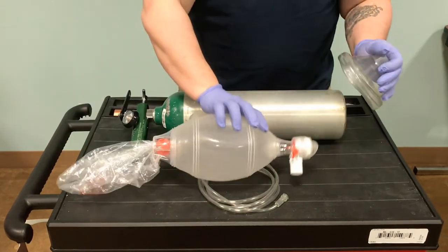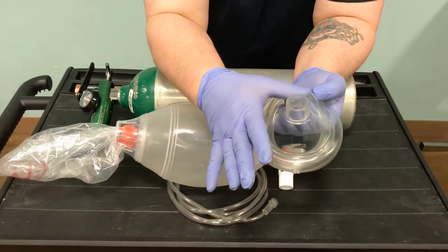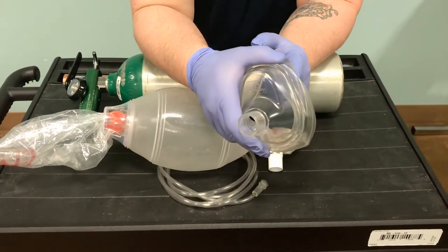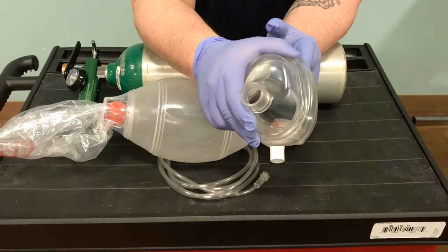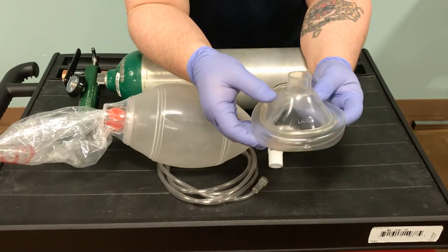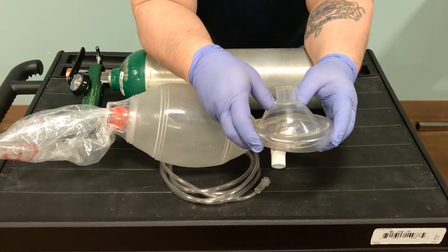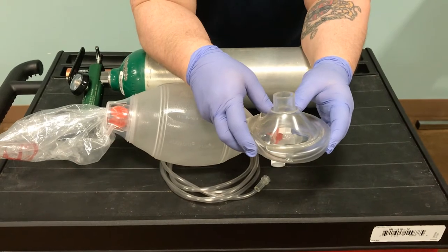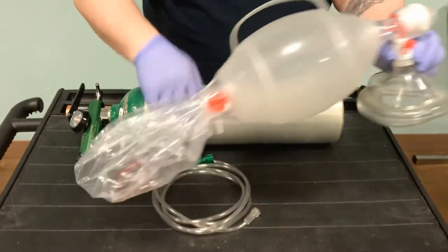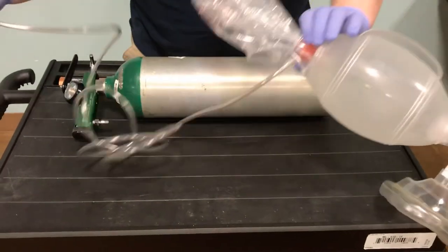When we look at this mask, it has a little thumb shelf. When we talk about a CE clamp, this is where my thumb goes, and this is where my fingers go. I don't want to come in contact with the mask itself — if I break the seal, we won't get a good fitting mask seal and that will cause a leak, so we won't deliver adequate ventilation and oxygenation. We spread it open, walk it down, and I'll show you on the mannequin. This connects to our BVM, and the O2 tubing goes to the inlet here, with the other end going to our O2 device.